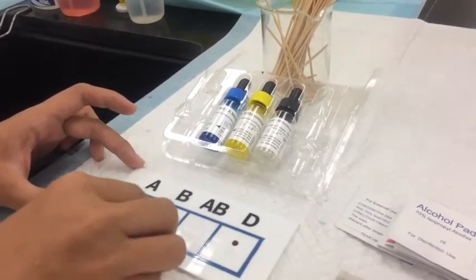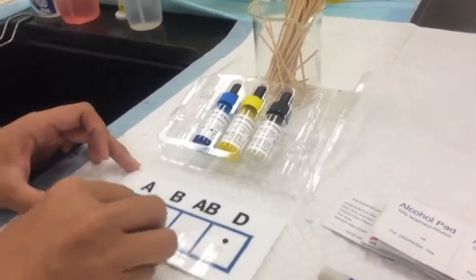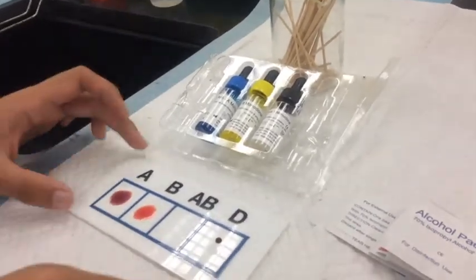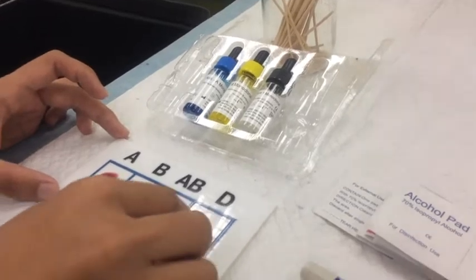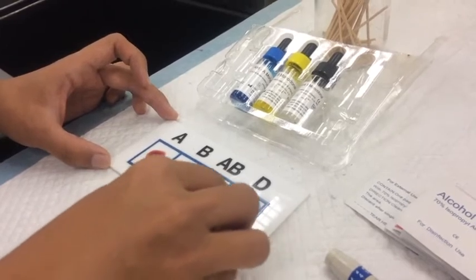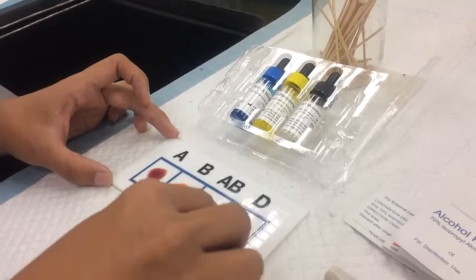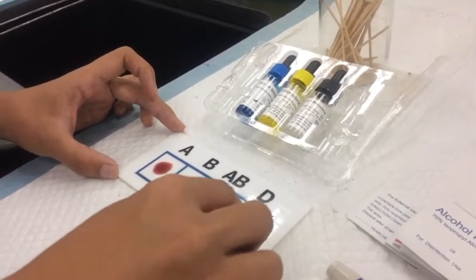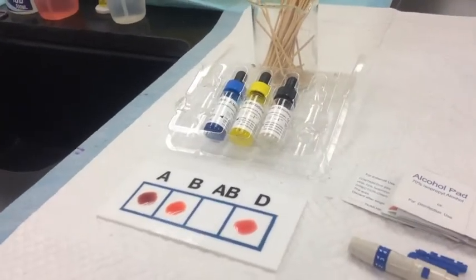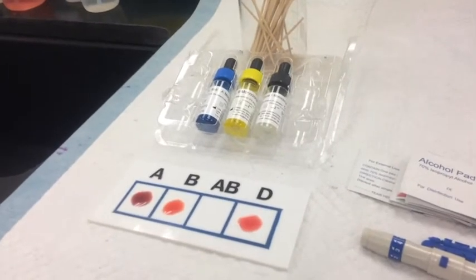We mix with the anti-B, then go on to the last part, which is the anti-D. We mix with this. Once the proper mixing is done, we discard the stick. Now we need to allow 5 to 10 minutes for the agglutination reaction to take place.